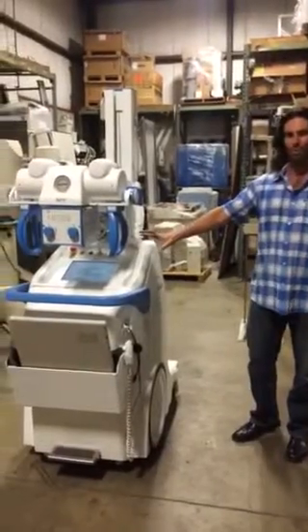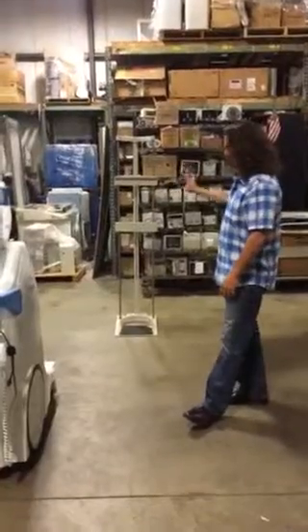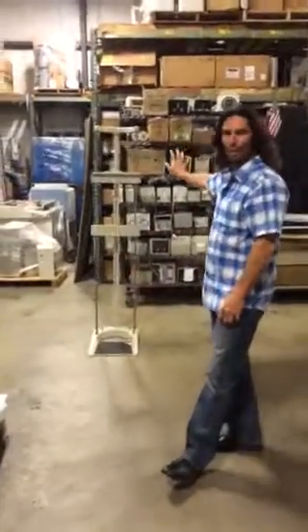This is your Canon DR portable as you would have it set up in your urgent care with an upright bucky. We could put the upright bucky on wheels so you can move it, or we could attach it right to the wall if it's going to be permanent.